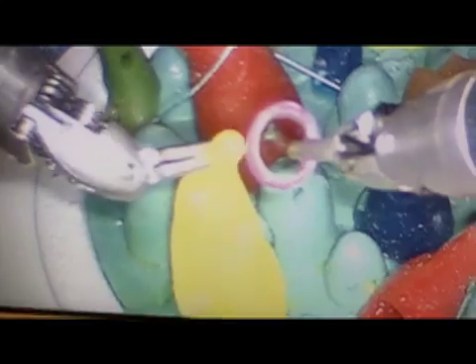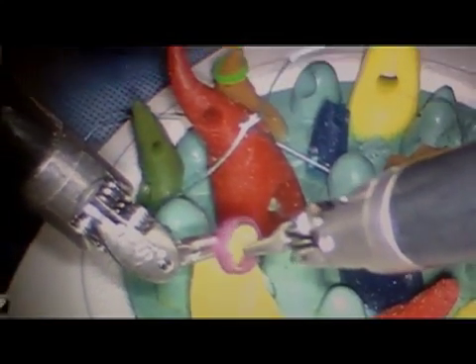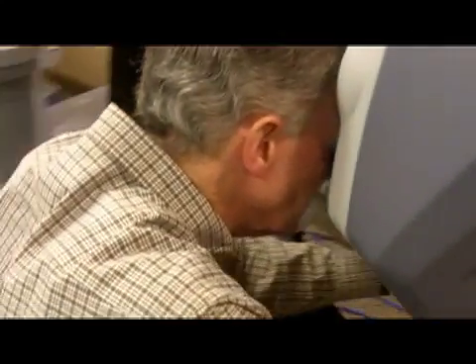These actual instruments are the same that would be used during a cardiac surgery case. The instruments allow for grasping of tissue, suturing of tissue, and retraction.